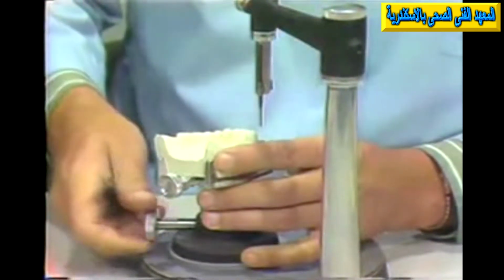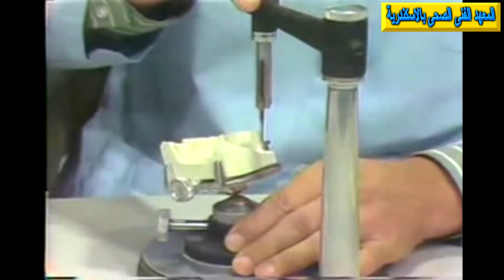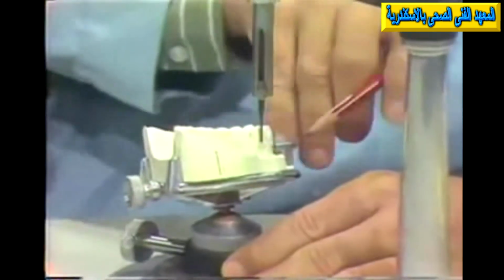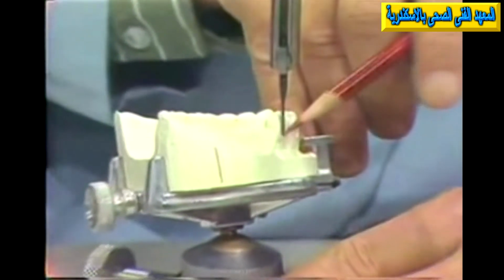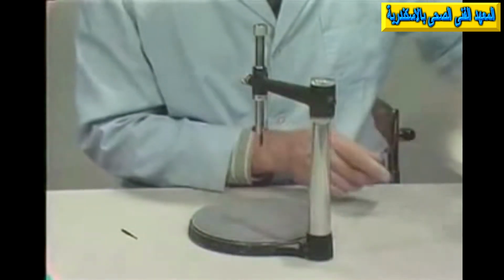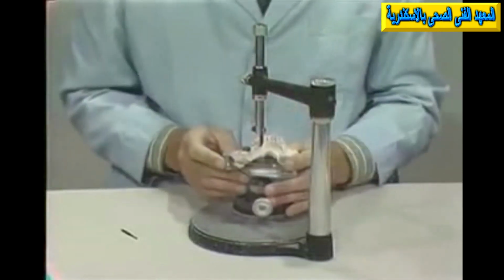And if we had, let's say, a bilateral tilt on a tooth which gave us no retention at all on the buccal surface, such as we have right here. If this situation were true unilaterally, we might be able to tip this area over to one side and choose another path that would allow us to get around this. But if we had teeth that were lingually inclined bilaterally, no matter which way we tip it, either the left side or the right side is going to be lacking retention in the proper place in this area. So if we found no other way around this particular circumstance, this tooth might be scheduled for some kind of a restoration with a gold crown, which perhaps would allow us to change the contour and give ourselves some retention in this area.